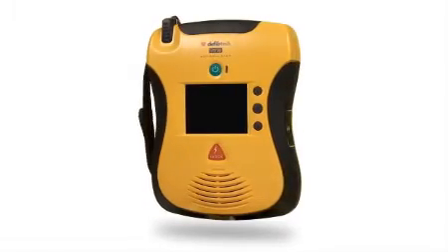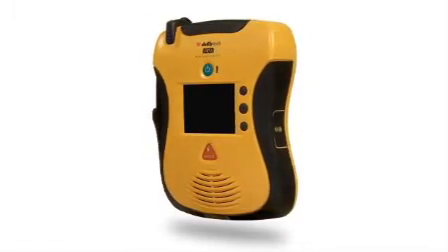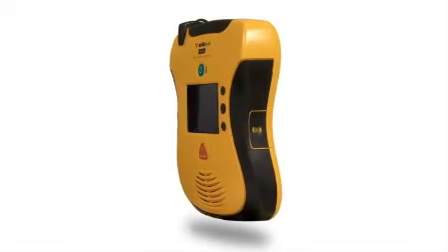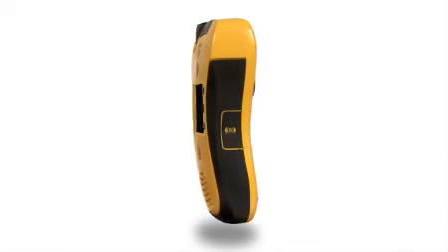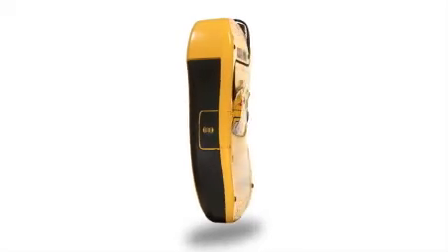Its smooth sleek design is even smoother and sleeker. Its rubberized grips make it easier to hold, and its ergonomic design makes it feel secure in your hands. The self-contained unit even has a storage slot for pads.